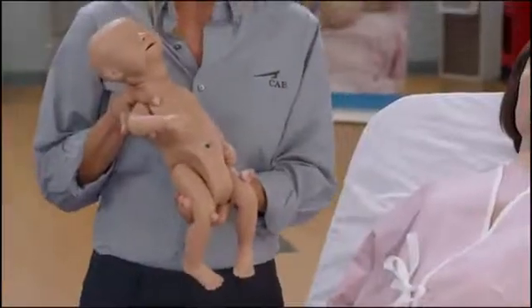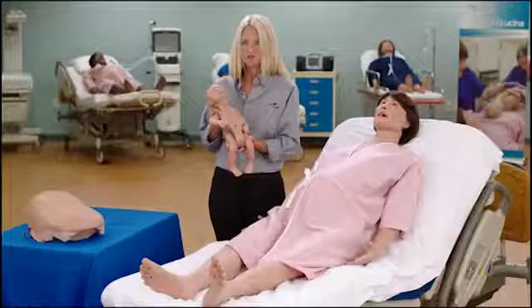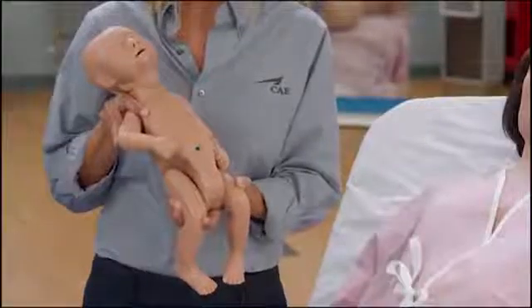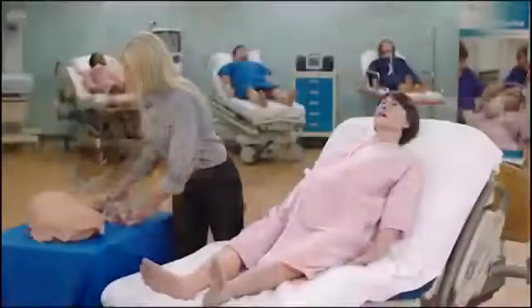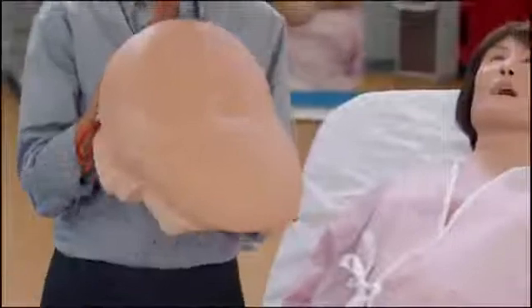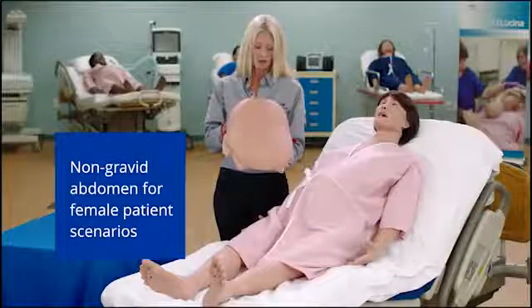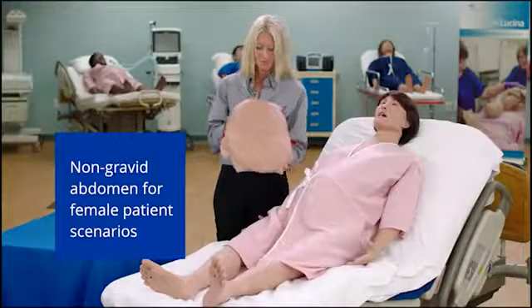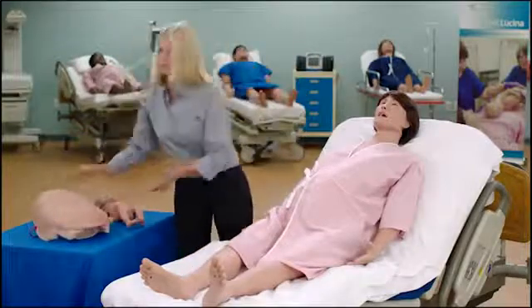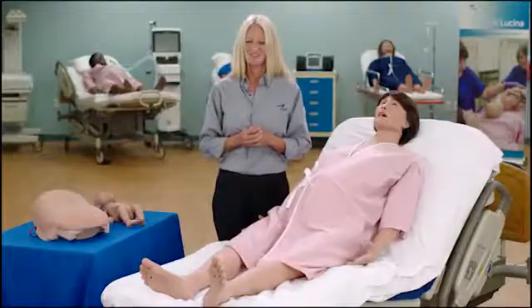The fetus cries upon delivery based upon modeled physiology and can also measure the force of traction applied to its neck. Lucina also has a non-gravid abdomen for simulations unrelated to pregnancy. We are very excited to bring you CAE Lucina.